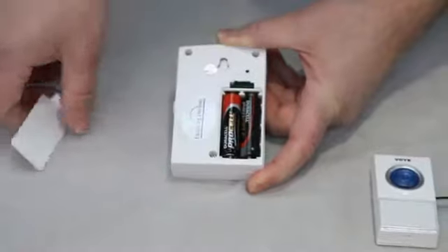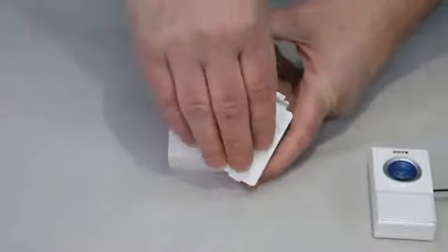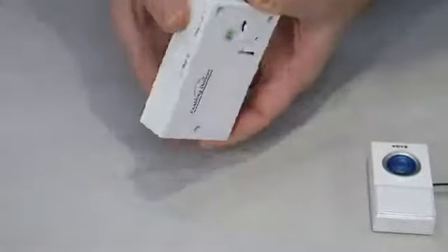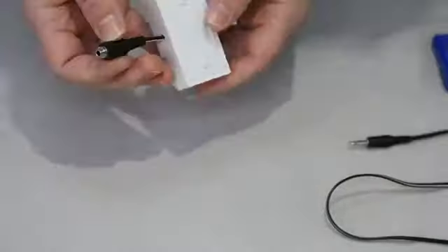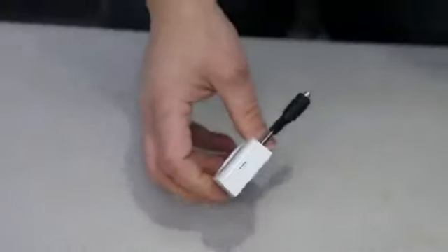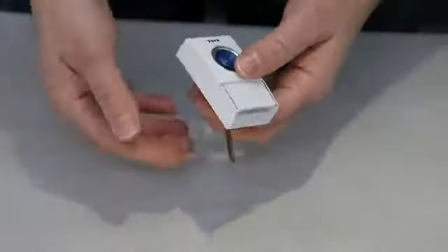And then the transmitter takes one 12-volt battery. The way you open this up, here on this end there's a little tab. You can use the tip of a pen.